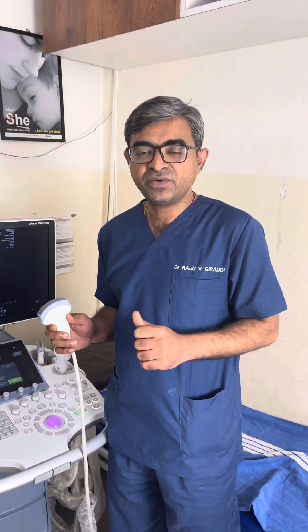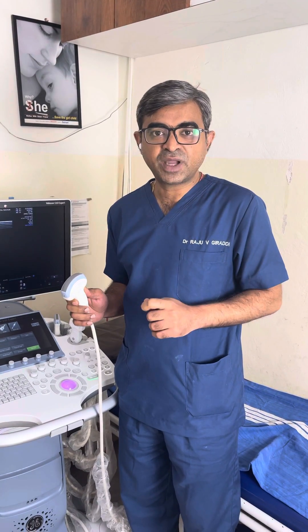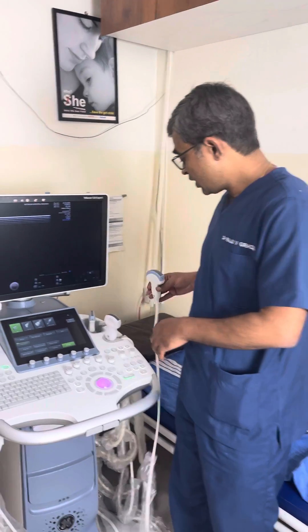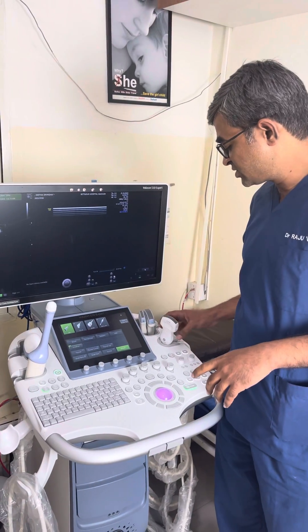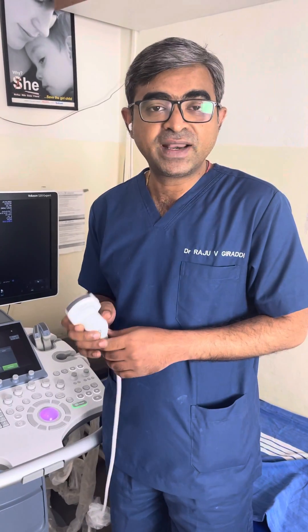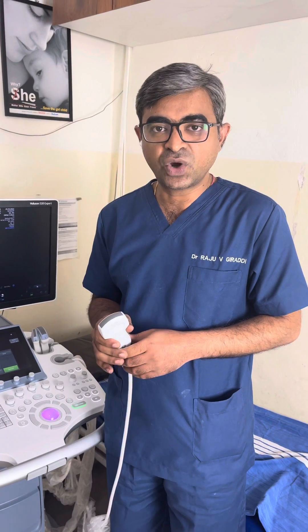For example, when you try to do a transabdominal sonography, these will give depth imaging up to 15 to 20 centimeters. In this category, you also have higher frequency probes which we use in fetal medicine — up to eight to nine megahertz — and they have better imaging quality.